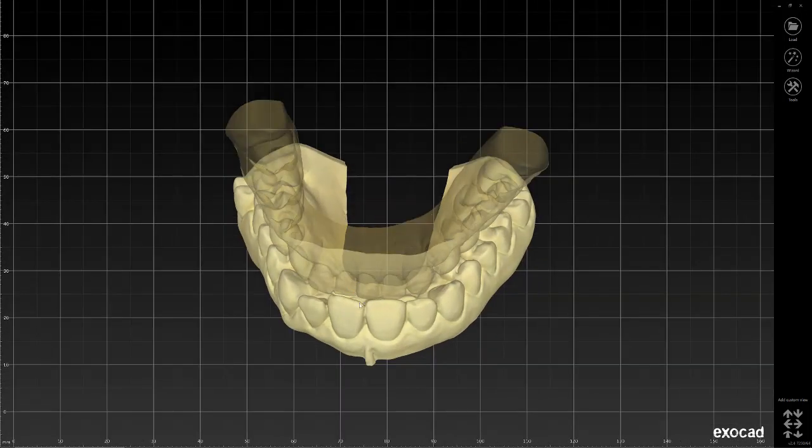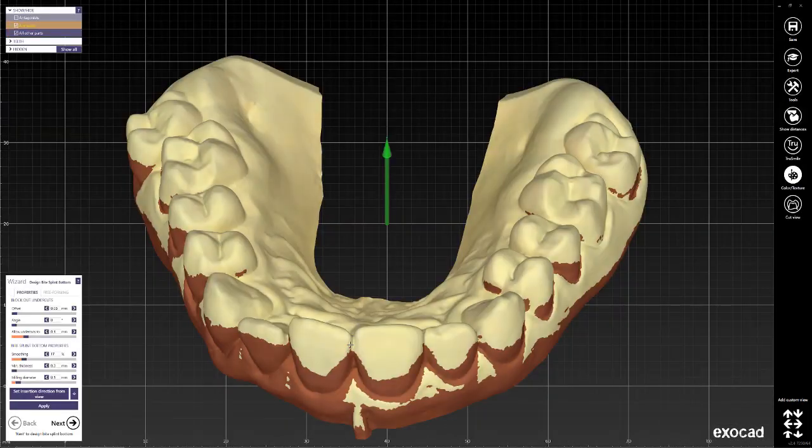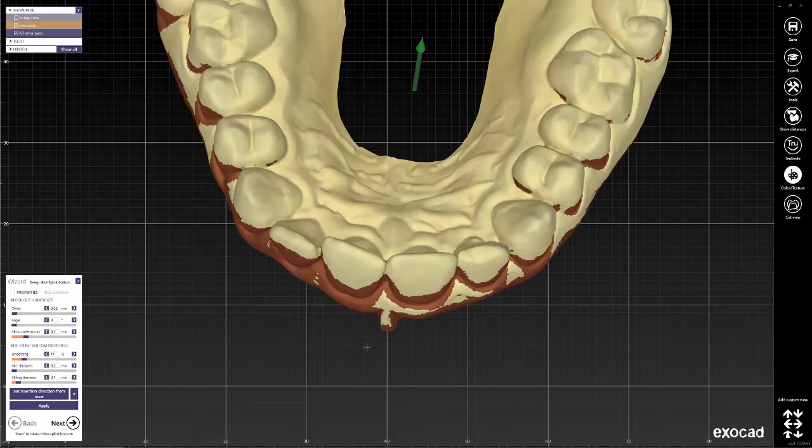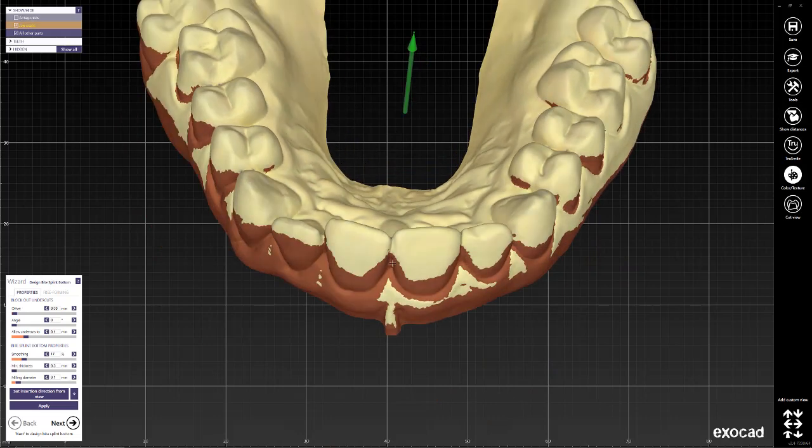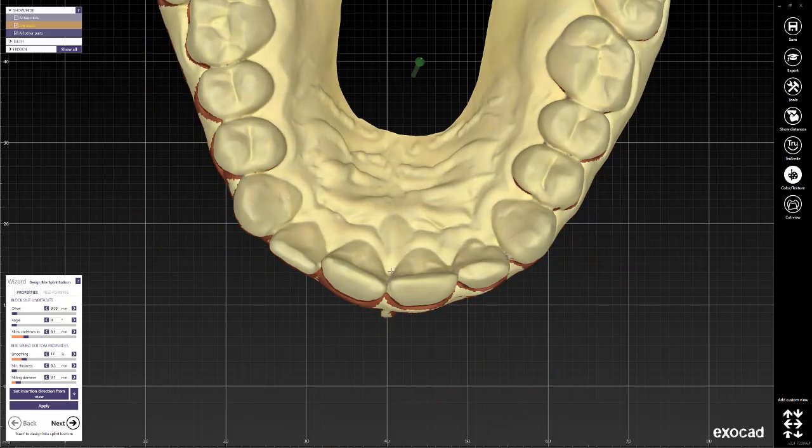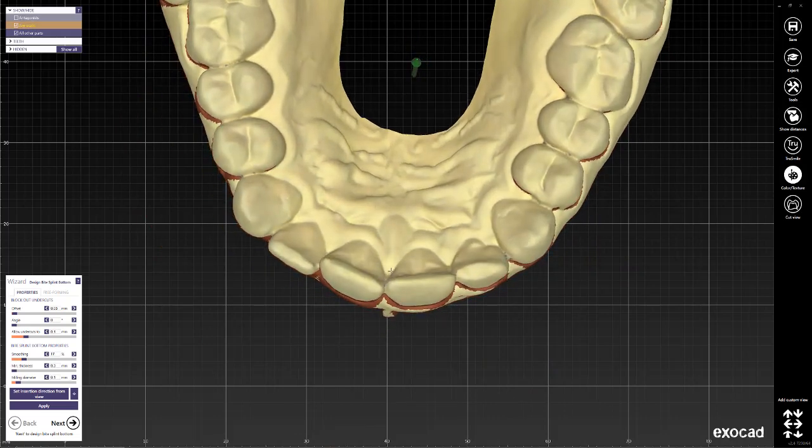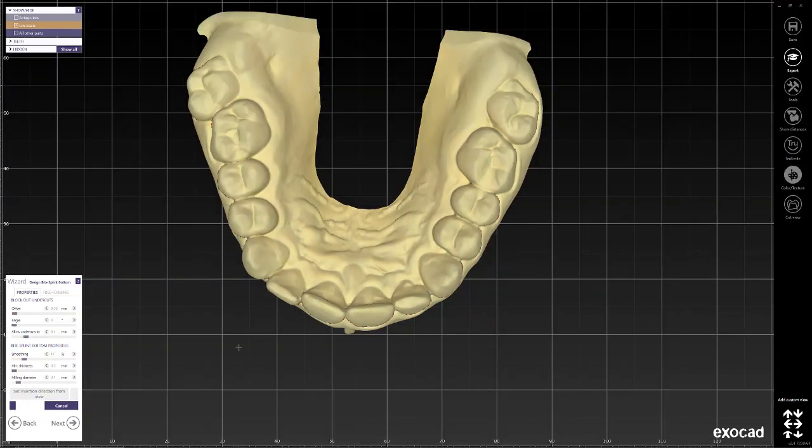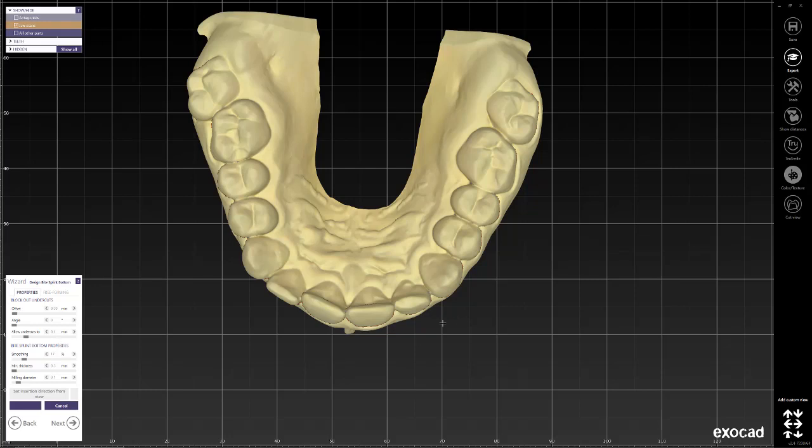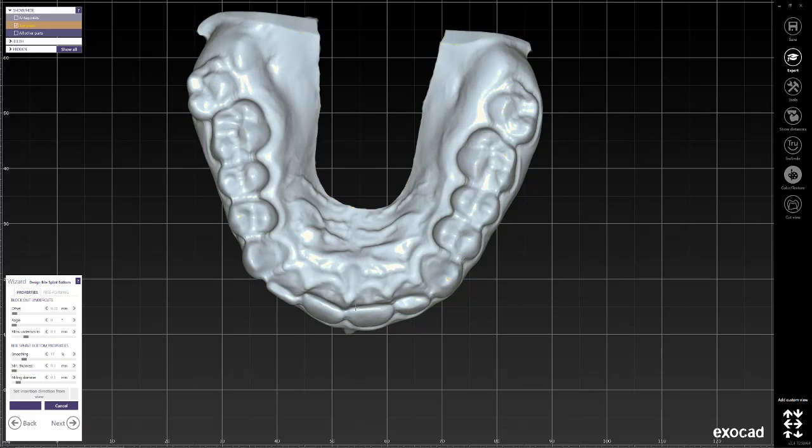We'll go through the design process as if we were doing a regular splint. First of all, decide how much of the undercuts we want to expose, make that correction, click next. Now I always go with the default settings because I don't know what your manufacturing process might do to those default settings and the fit, so I would suggest that you start like this and then test it to see if it fits. If not, then you can start tweaking all the parameters.